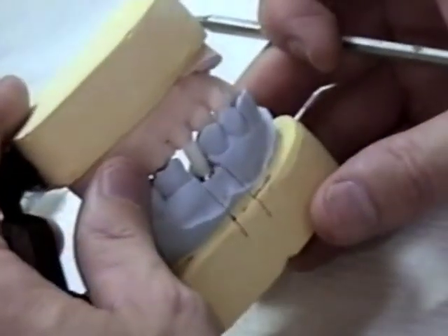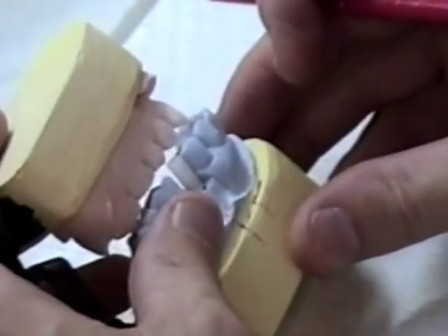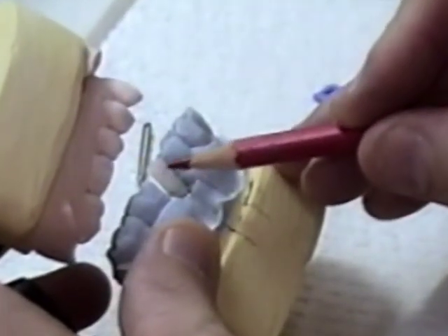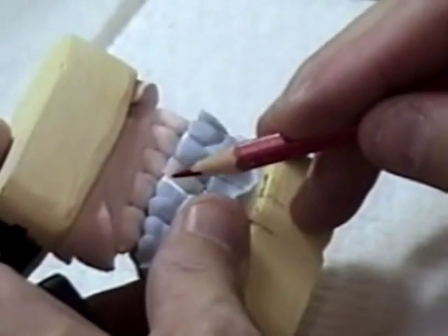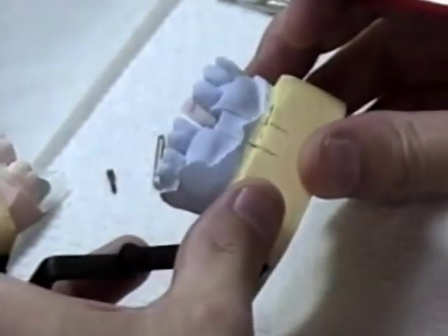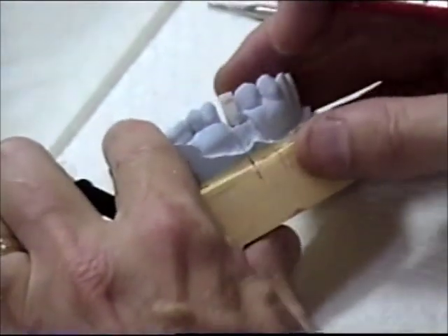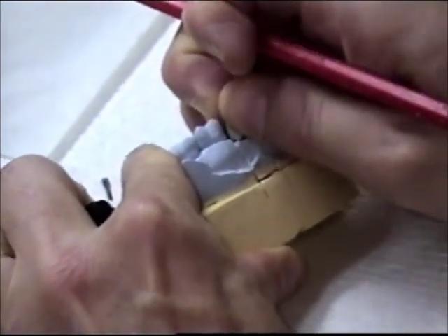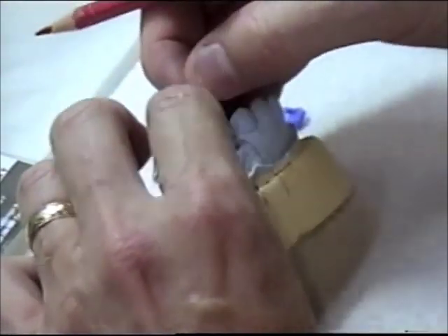As you can see, the occlusion is open because the cylinder is quite a bit long here. So what we do is we cut this plastic cylinder top off to roughly where we think the occlusal will be on our abutment here. I am going to go over to my handpiece and cut this off and then I will bring it back over here to the model and we will take a look at it to see if we need to take any more off.